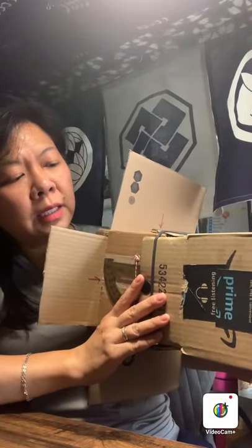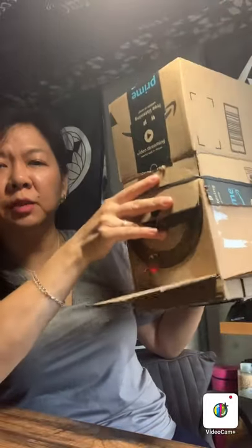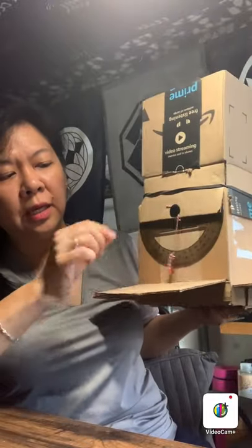Another design element I added was a second compass, and this one's actually for the tabletop version. So when you are doing skull work, you can actually angle your tube as well. I have a really cool design element that will let me do tabletop, and we will proceed to that in a moment.